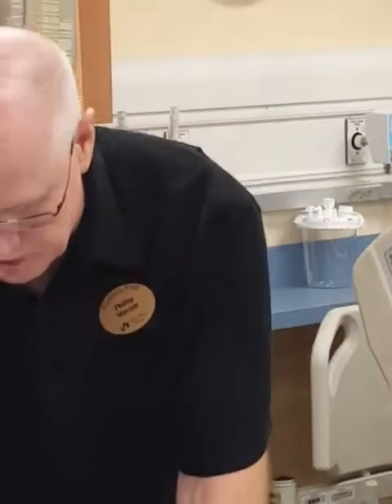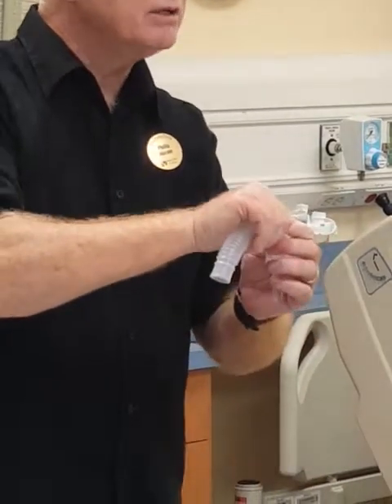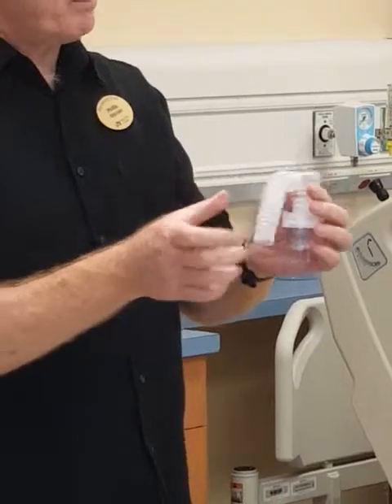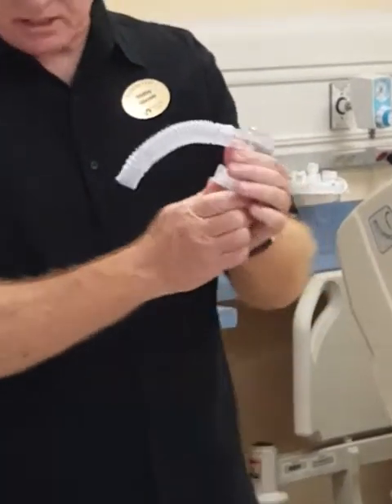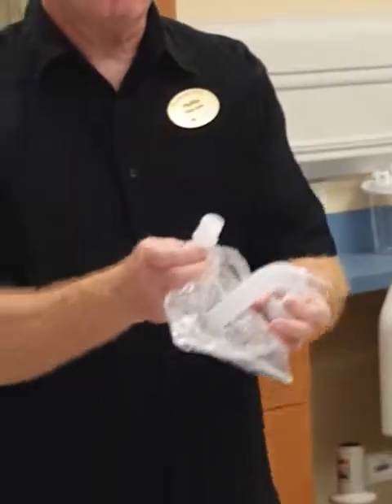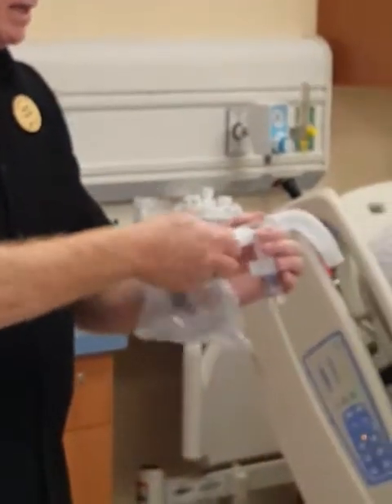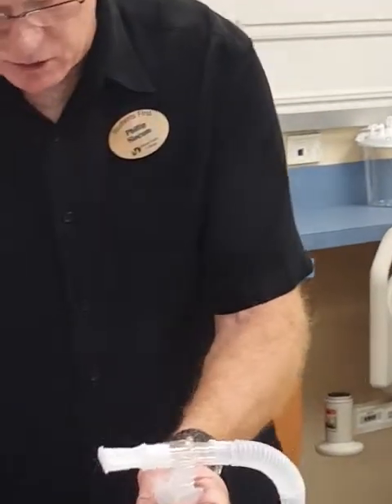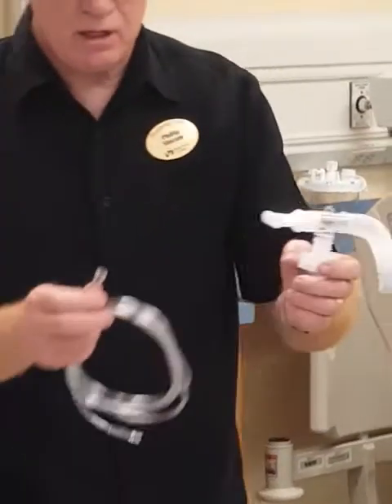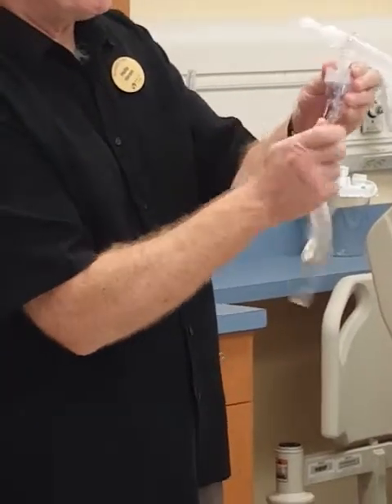There's a length of corrugated tubing — that's called the reservoir, because it's going to have a small holding chamber for the medicine. Then there's a mouthpiece. We don't want to handle the mouthpiece with our hands since the patient is going to put it in their mouth, so you want to keep it protected. And then the last piece to assemble is the oxygen tubing, which is essentially the drive line for this — we insert that there.